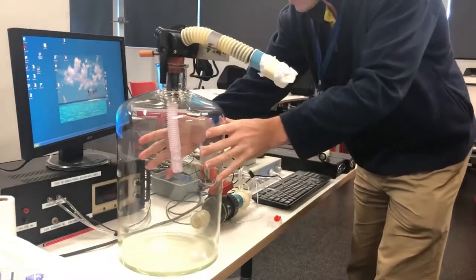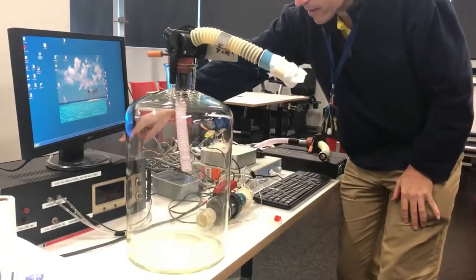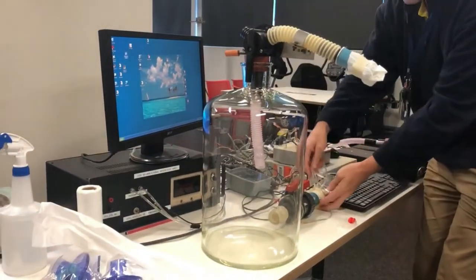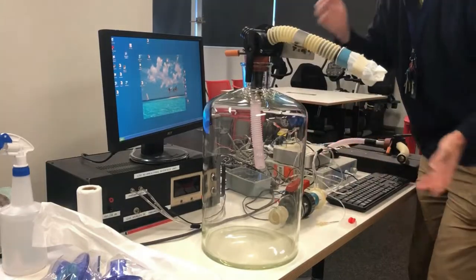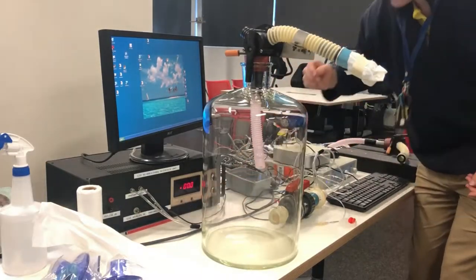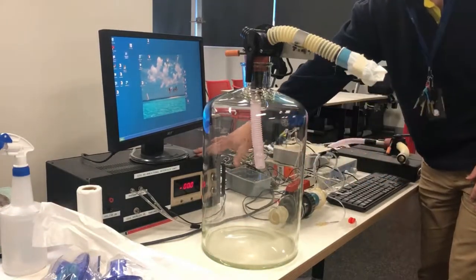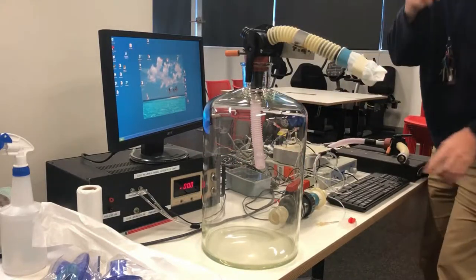The components that we need include the flow meter. This big black box here attaches to the flow meter, and when we're using it we'll turn that on. We turn on the flow meter and it will just measure the volume of the breaths in and out.